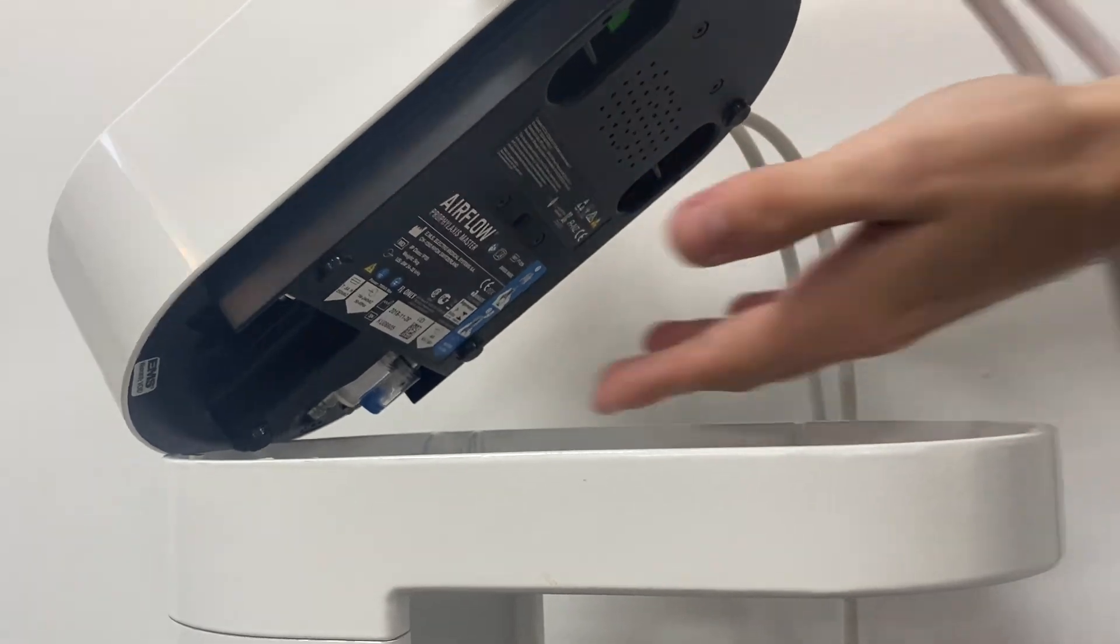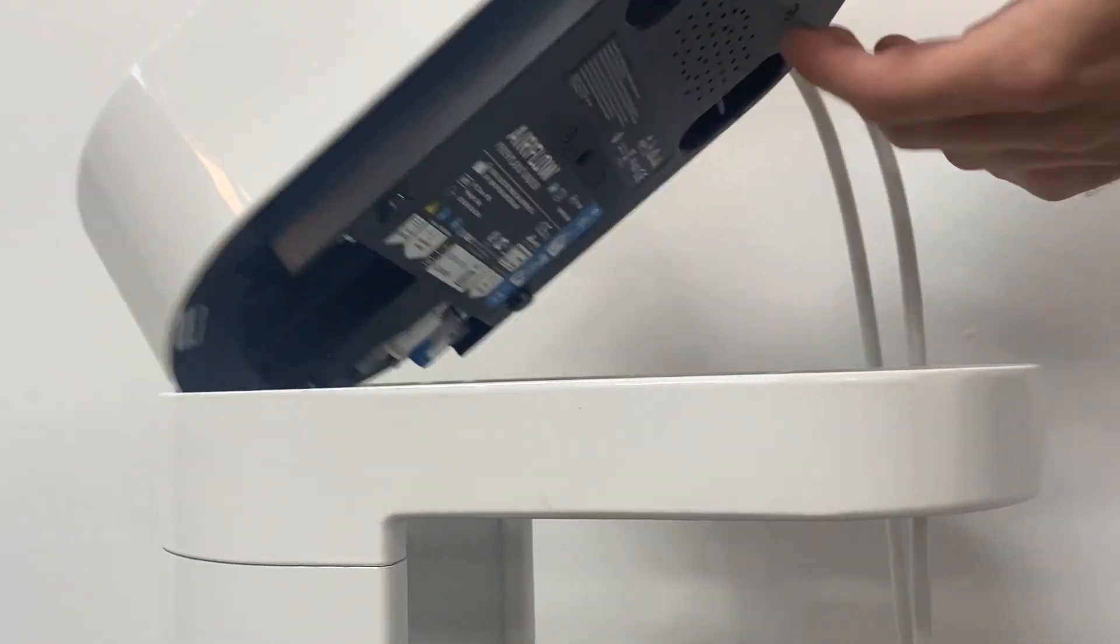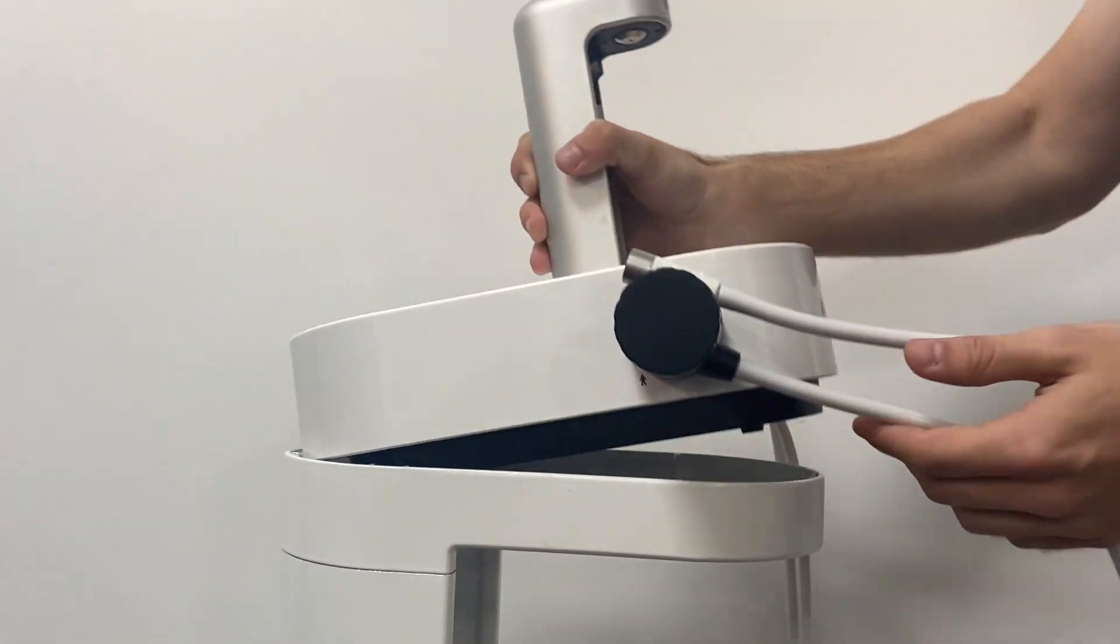It's a bit tight, but you'll be able to remove them. Once that screw's gone, you can just lift the unit off.